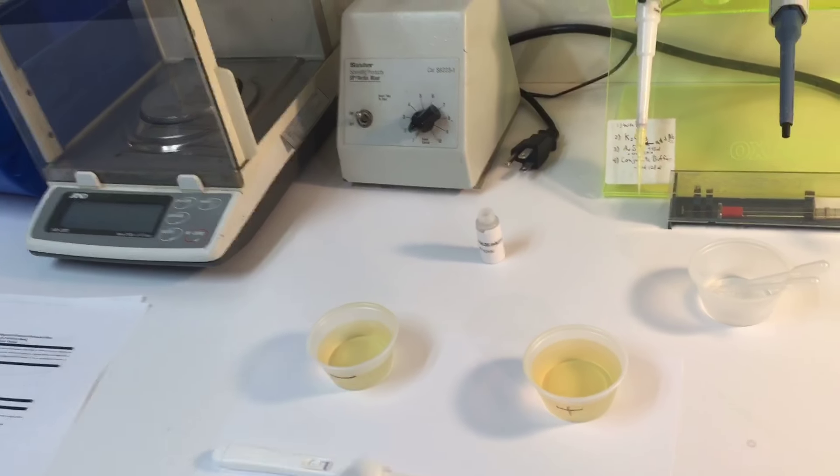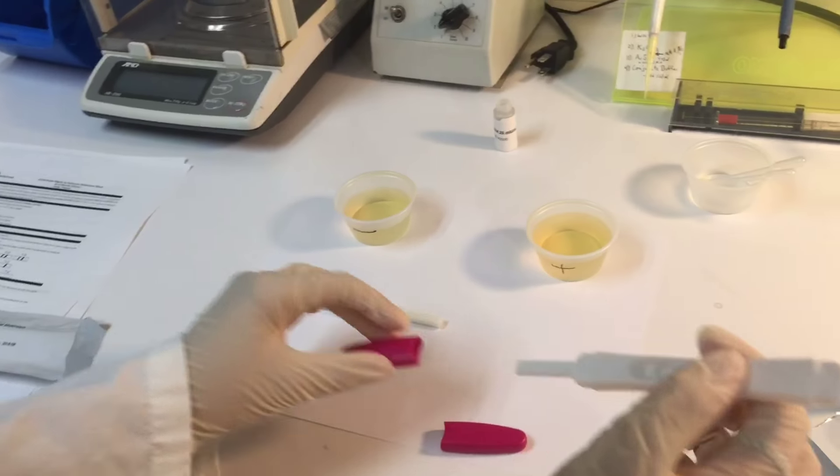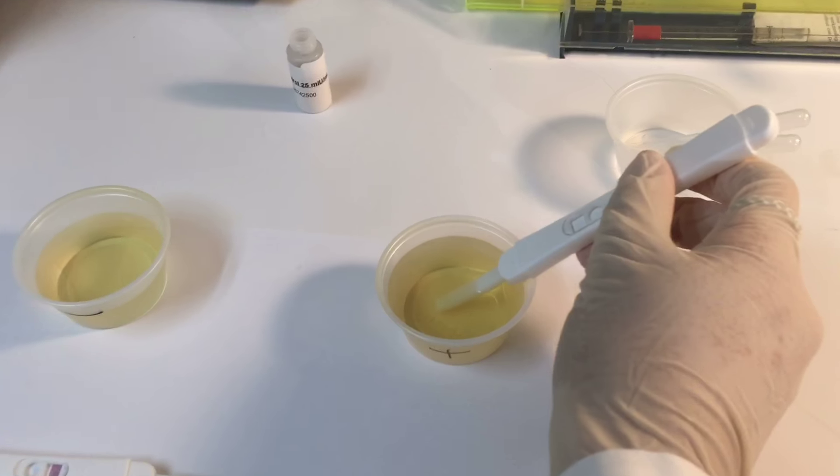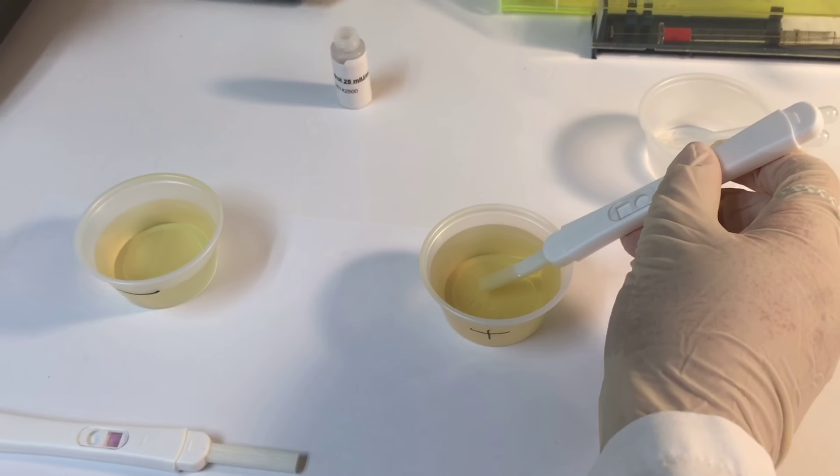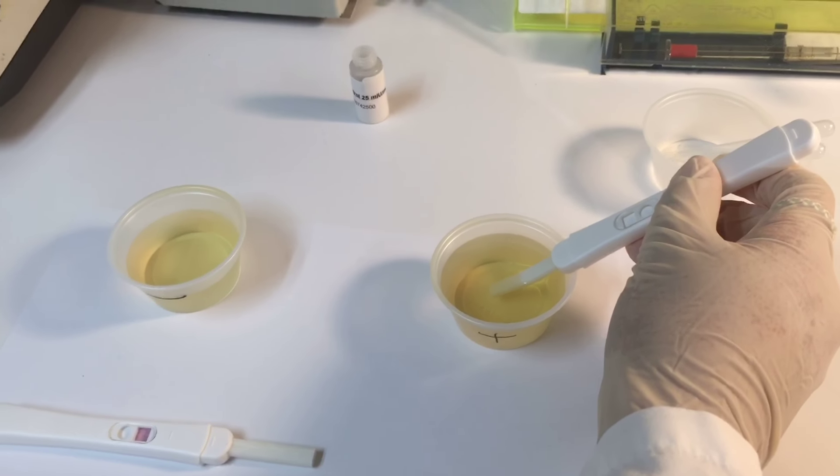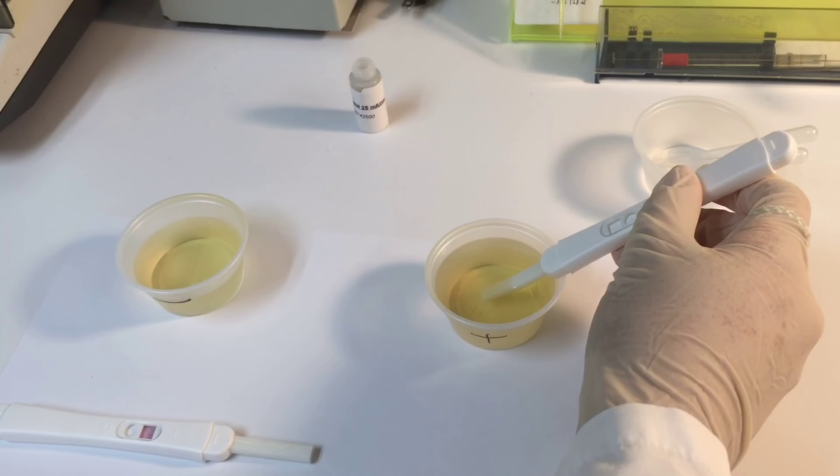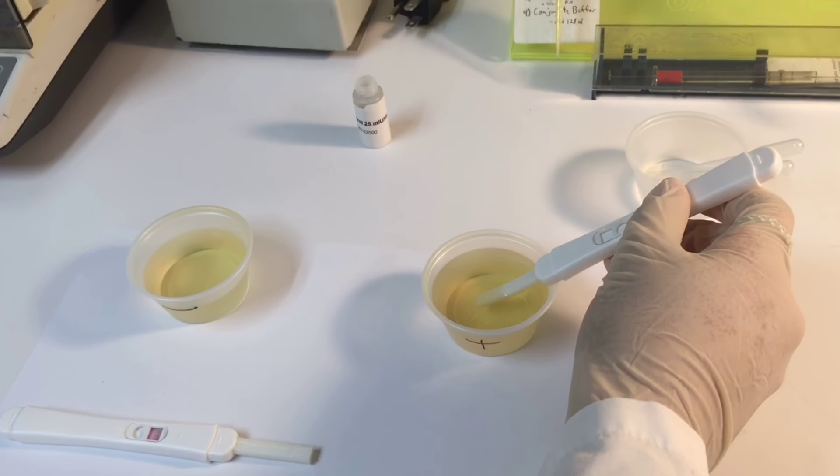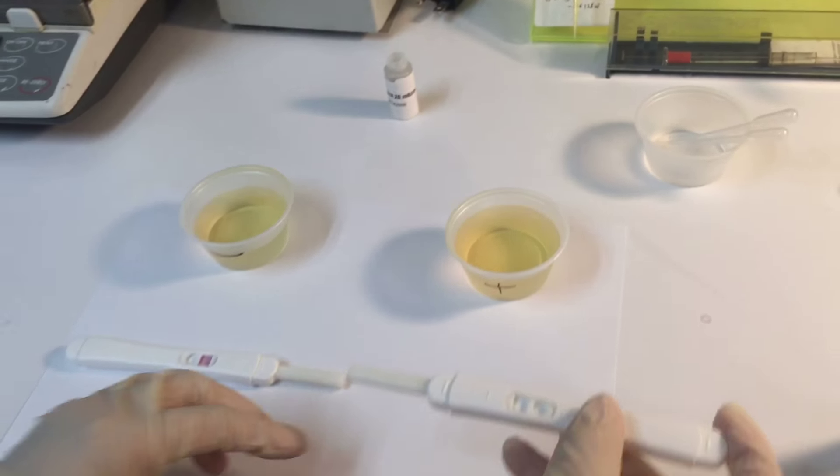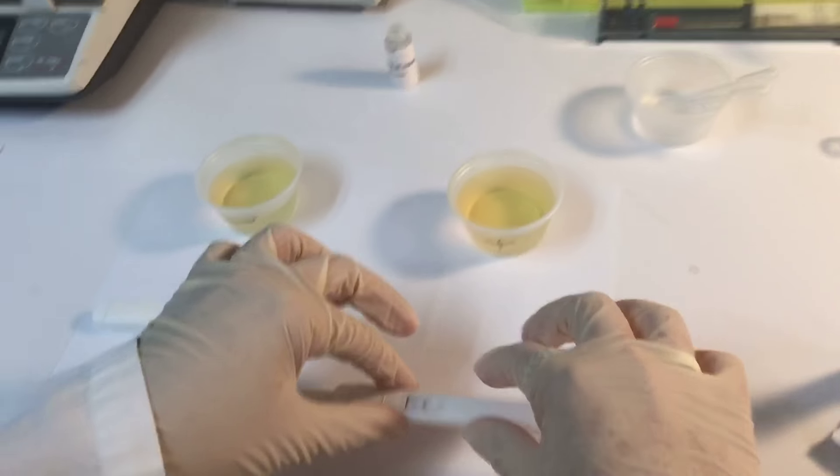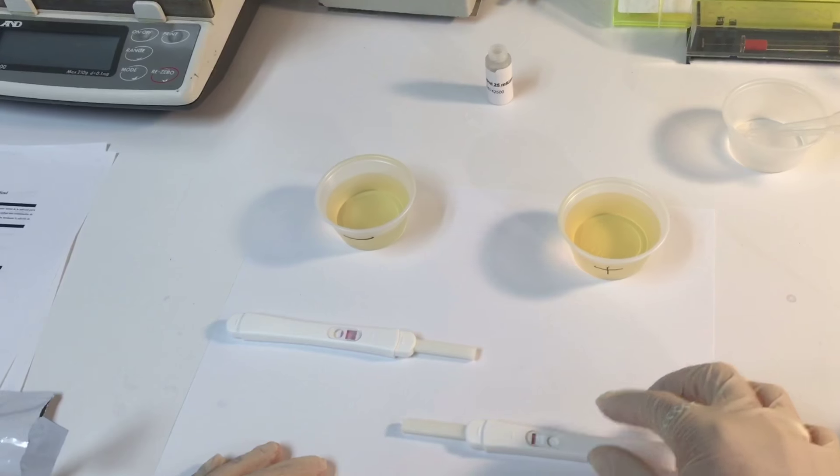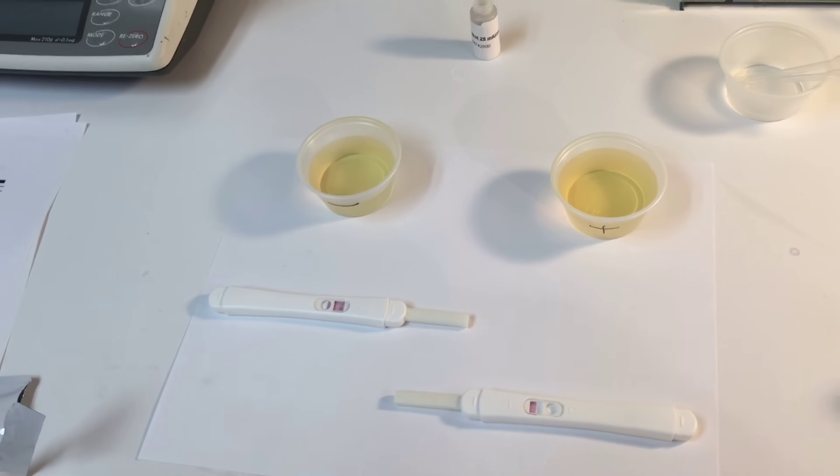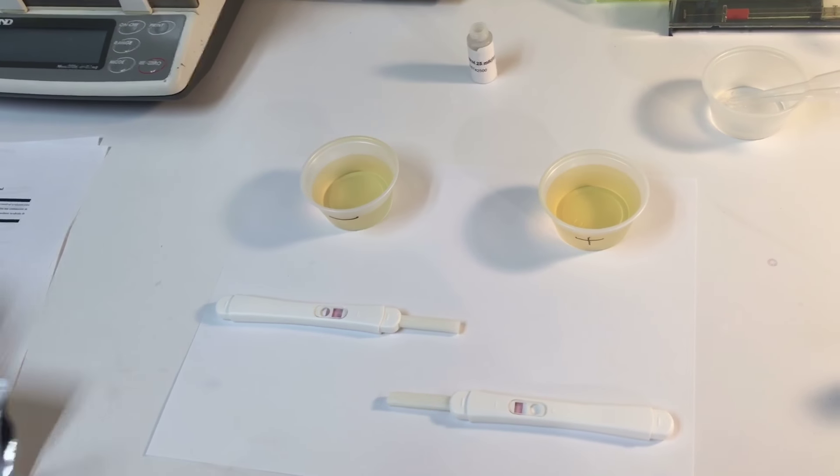And we are gonna introduce this one on the positive sample. We have to wait around three minutes and never read it after ten minutes.